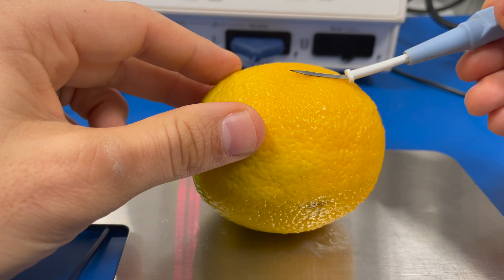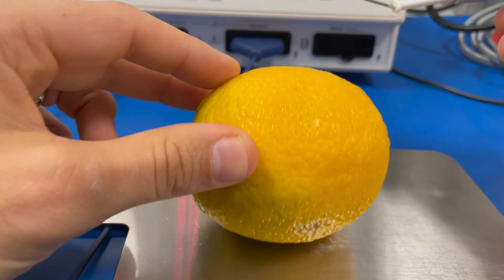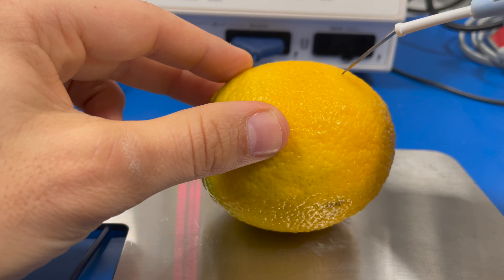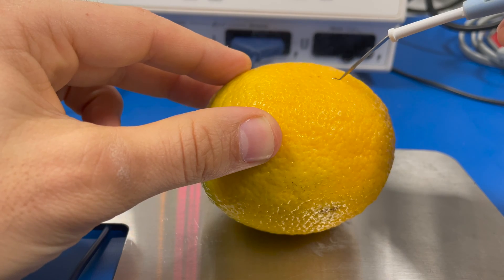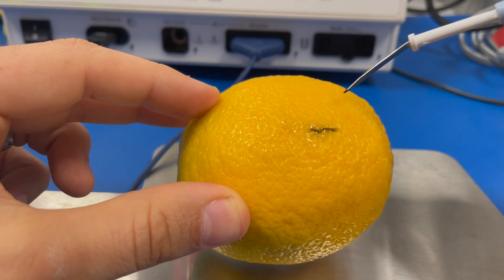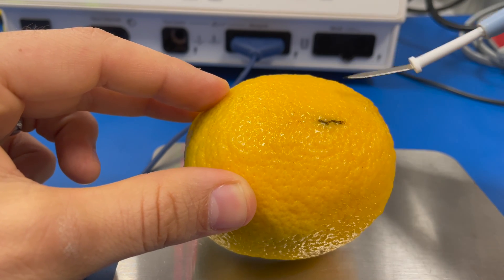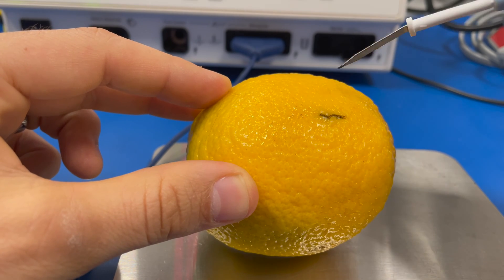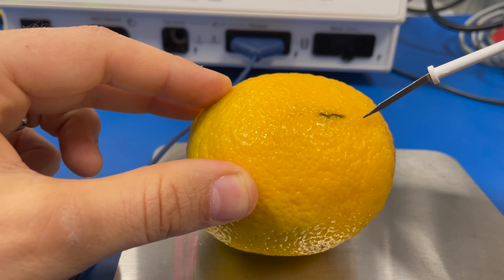I'm going to push down on the flat end of the electrode and use the cut function. You can see that very little has happened to the orange. Now if I increase the current density by just using the tip of this electrode, let's see what happens. So you can see I'm now cutting right there. Just by changing the amount of contact area, I'm able to change the current density, which influences what's happening at the surface.